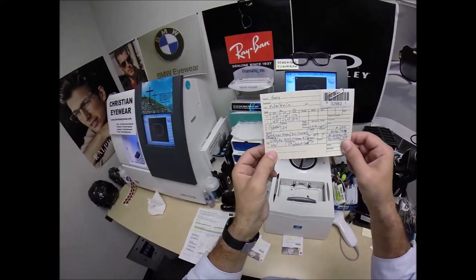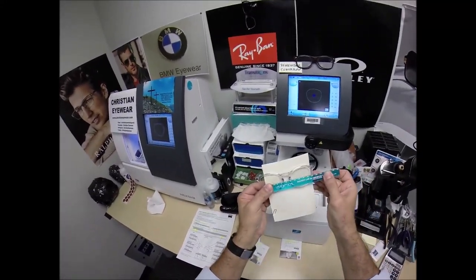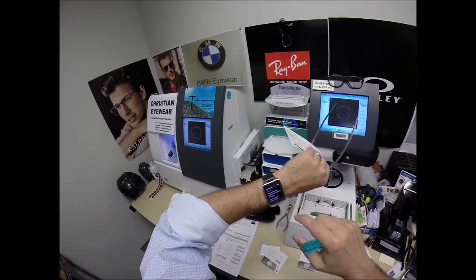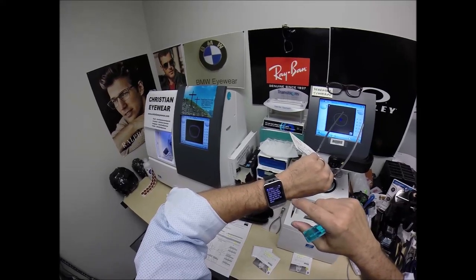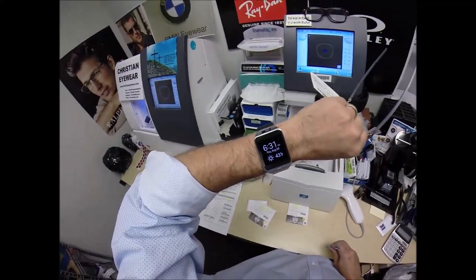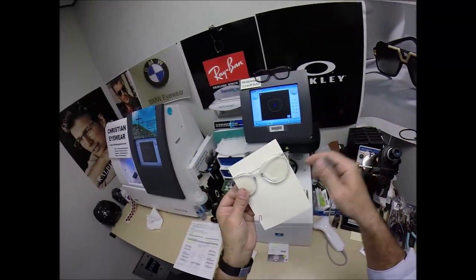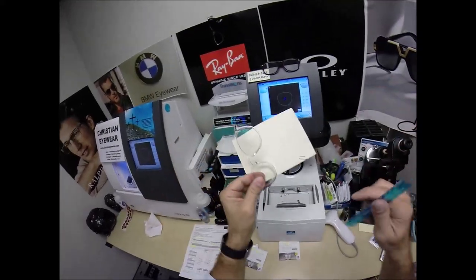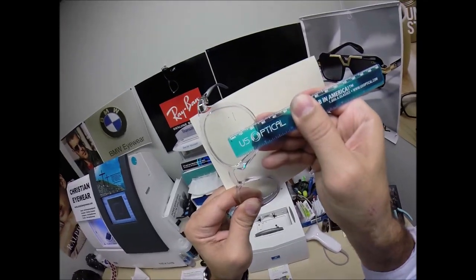The other part of the final inspection is to measure your pupillary distance and the optical center height. Your PD of 63. I'm going to turn the card around, place the PD stick against my thumb, hold it up. When I measure against your right lens and hold it up to the left lens, we're getting 63 millimeters. Just like the crosshairs of a scope, I measure vertically and horizontally. I just did the horizontal. Let's do the vertical — which is going to be 24 millimeters. Not to the bottom of the lens, but to the middle of the plastic, because your lens goes halfway into the plastic. That is 24 millimeters. That is cut perfectly.